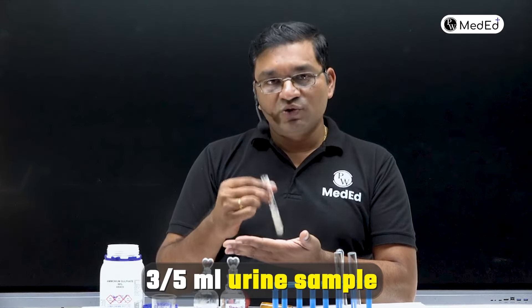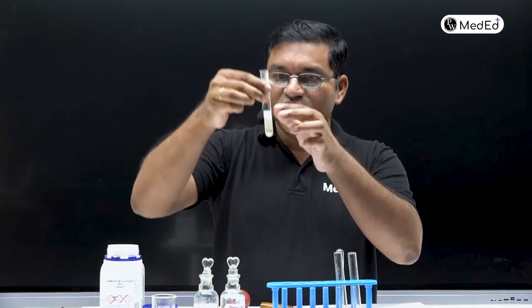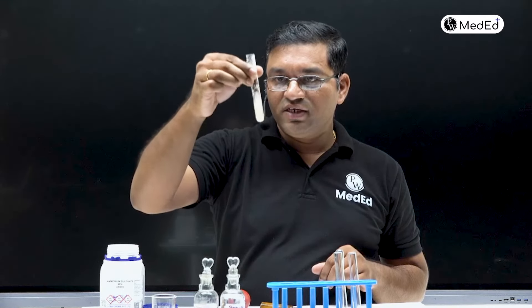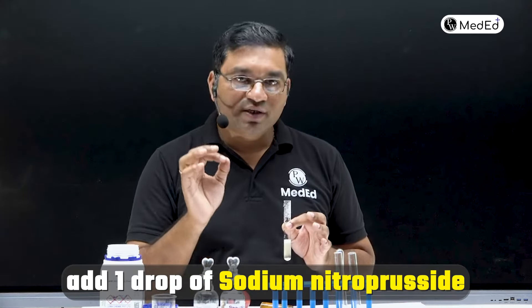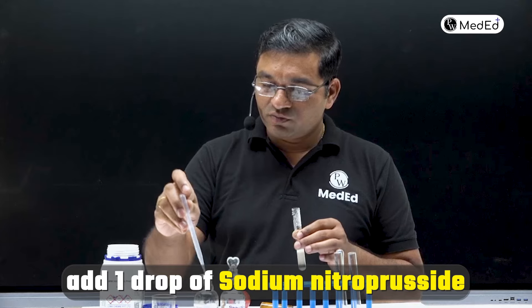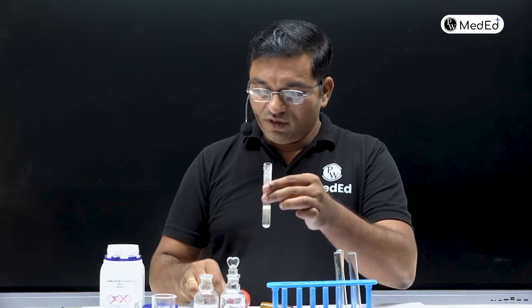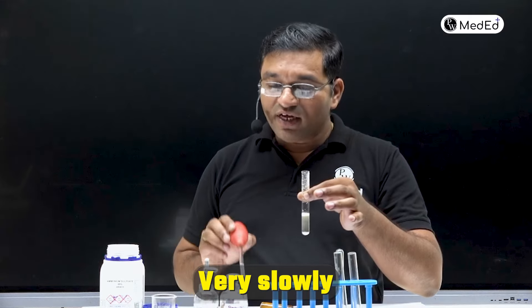First step: take 3 to 5 ml of urine and saturate with ammonium sulfate powder. See the bottom of the test tube — there is some ammonium sulfate salt left, which means the saturation level has been achieved. Now, to this solution, add one drop of freshly prepared sodium nitroprusside.